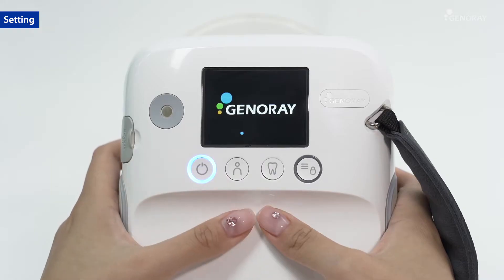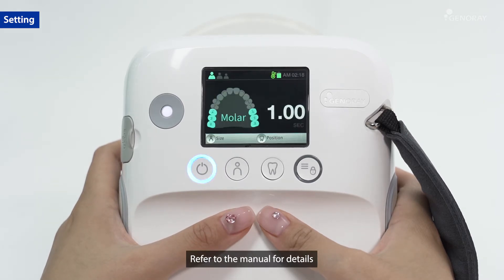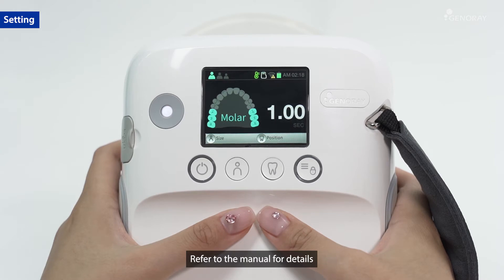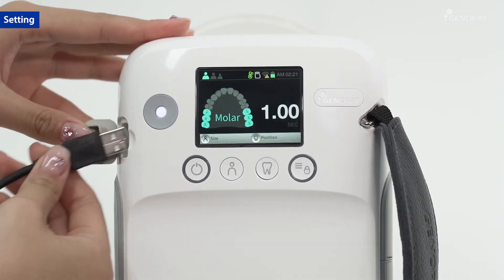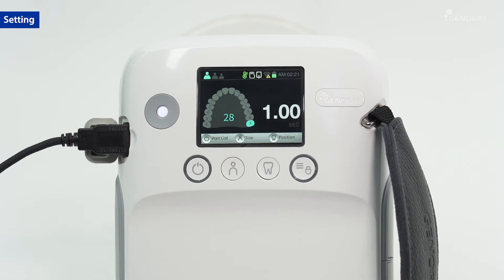Turn on the power and check the display. You can change the exposure setting and view the current status of the equipment. Connect the sensor to the main unit and check for the changes.